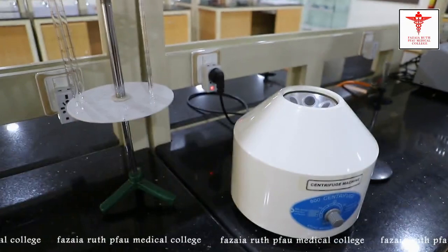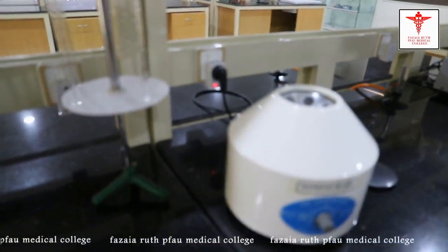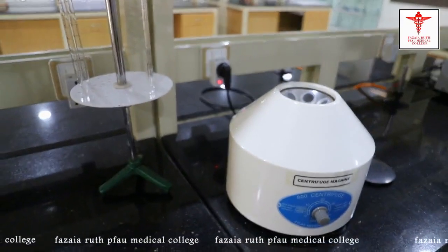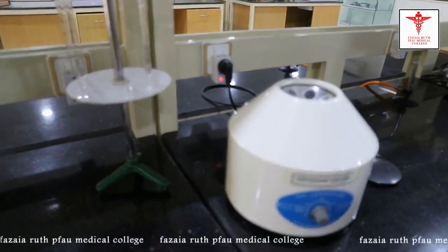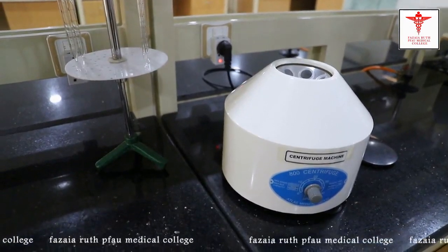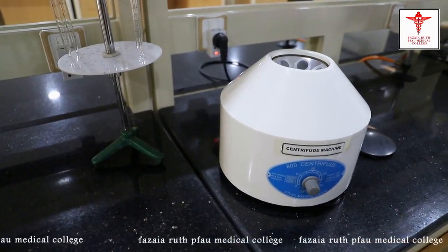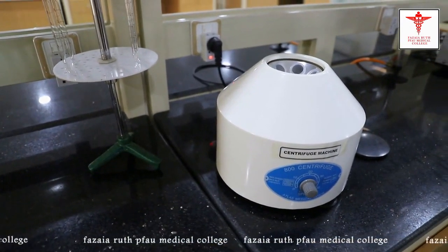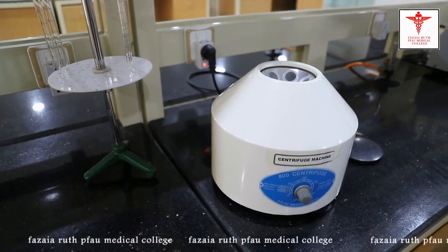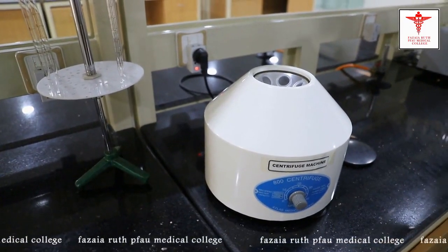Okay students, we are here at the biochemistry lab, so we'll now demonstrate the entire process which I have explained to you earlier. We begin with the preparation of the sample, so for the sample we take the whole blood.